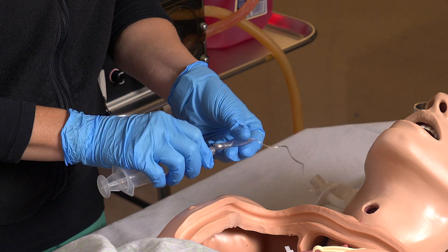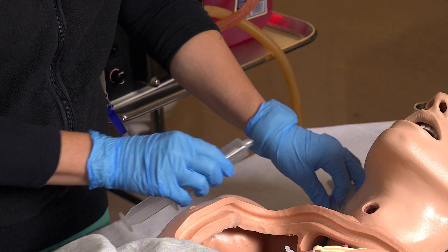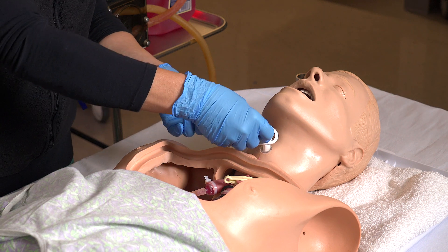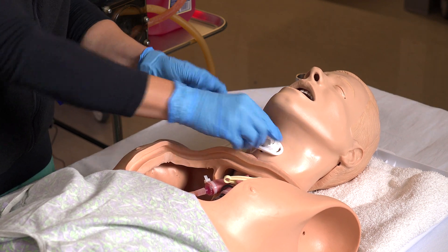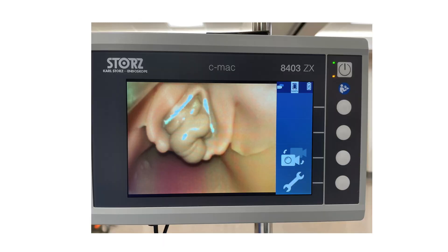The last thing you're going to want to do is use a laryngoscope to take a look at the larynx and occlude it, just as in the case where the patient has laryngeal cancer. Get a video laryngoscope, take a look at the larynx, and then use a material to completely block it as his cancer would have done. We used a synthetic material from our dental school, but a synthetic silicone-type material would probably work fine. We have still shots of what that looks like in the paper as well.